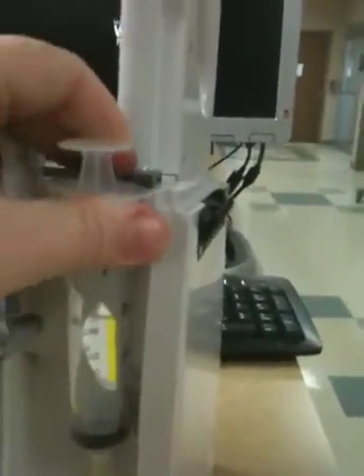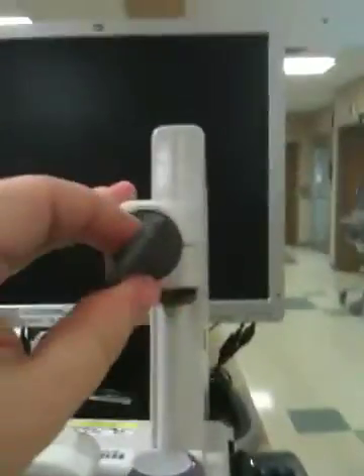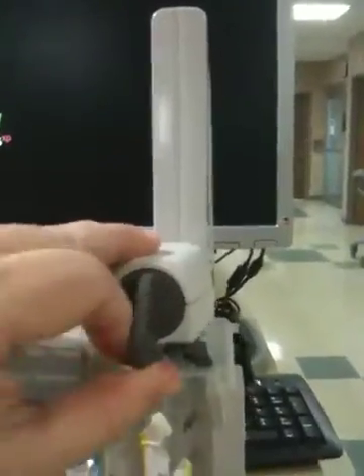Basically all you do is you set it in and let it grip it. Then you turn this knob up here and bring it down to the top of the syringe and that will grab the top of the syringe just like that.